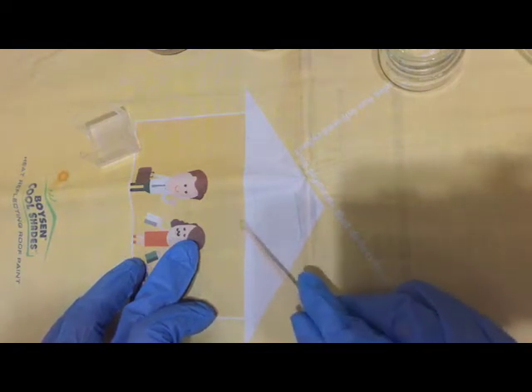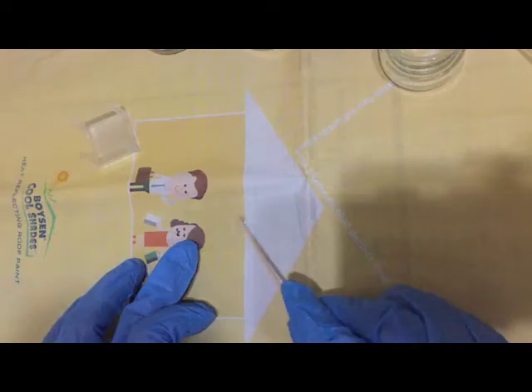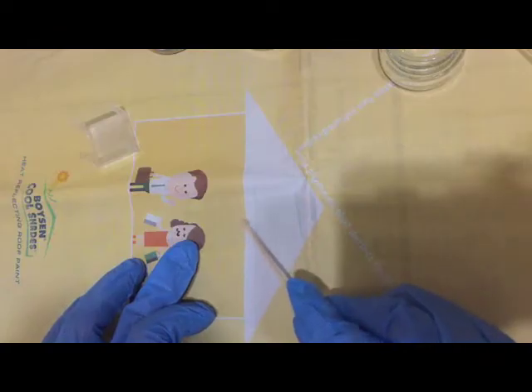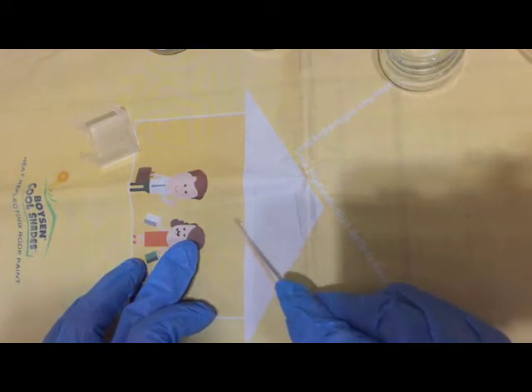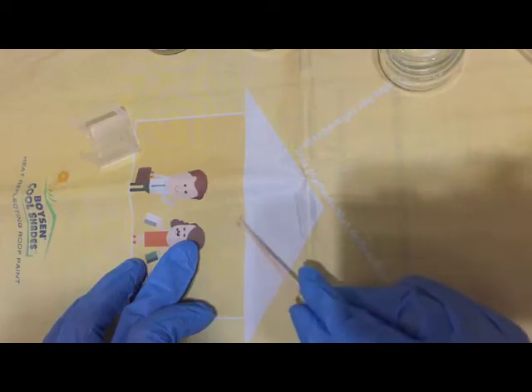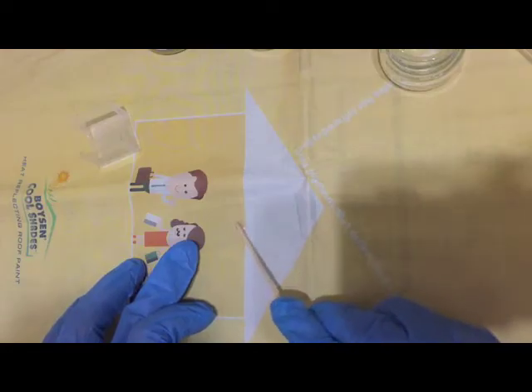You'll notice that there will be turbidity in the NSS and if you see homogeneous turbidity forming in the NSS then you're sure that you have sufficient amount of stool there.